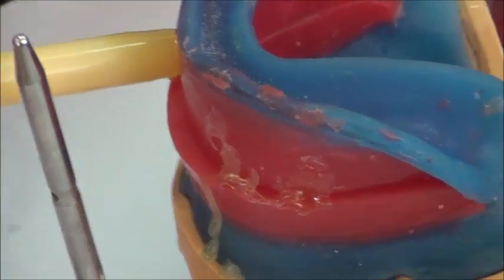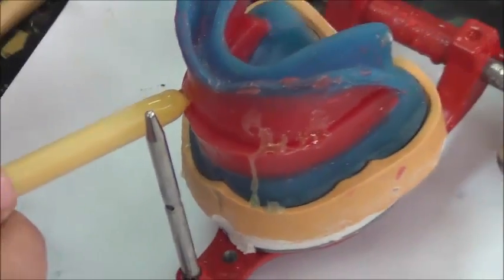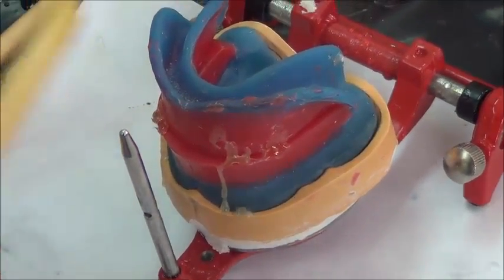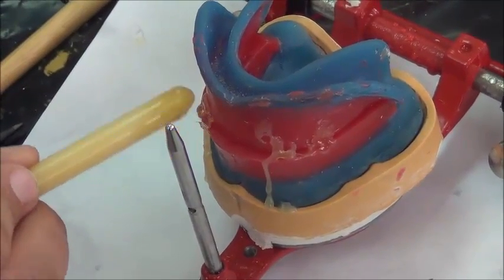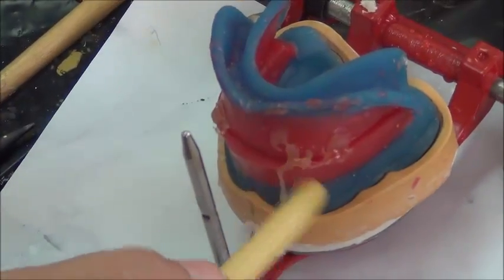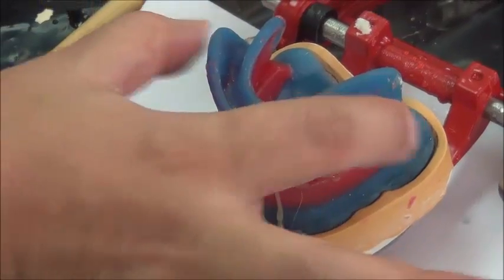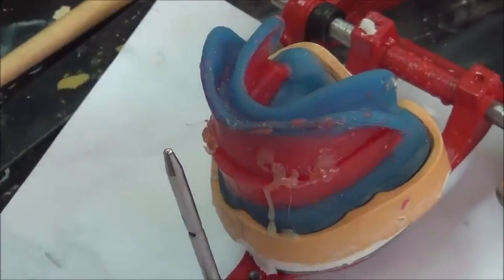In the case of the patient, we would have this fixed from the clinic. The upper and lower are fixed to what we call retruded contact position in the patient's mouth. But here we're going to fix it with a sticky wax. And now it's a bit firm in place. So once I'm going with the additional steps, I could easily put them.